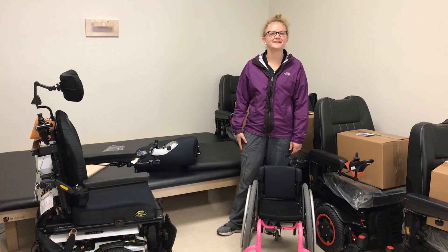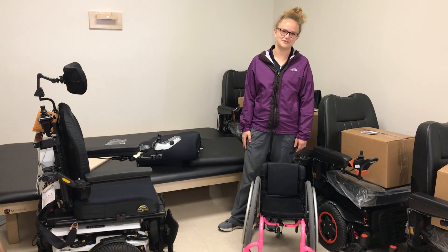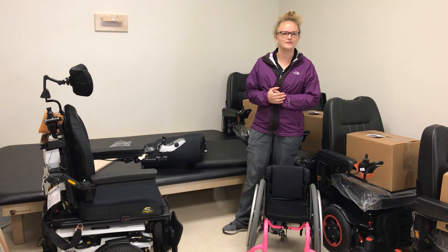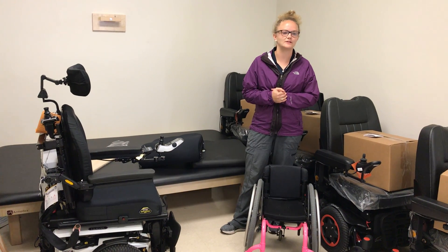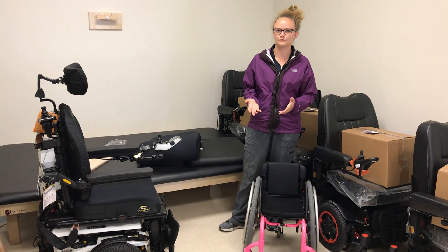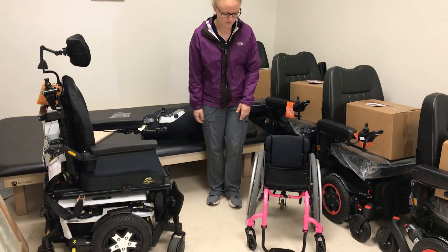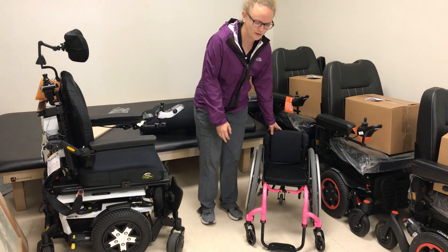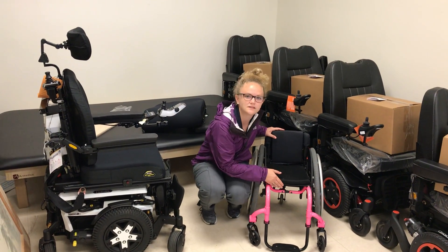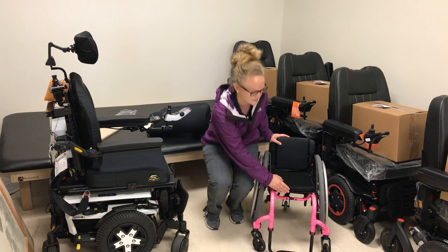Hi, my name is Allie and I'm your assistive technology professional. Today we're going to go over some different aspects to consider when trying to determine the best seat-to-floor height for the end user. Seat-to-floor height is just from the floor all the way to the seat pan, not including that seat cushion.